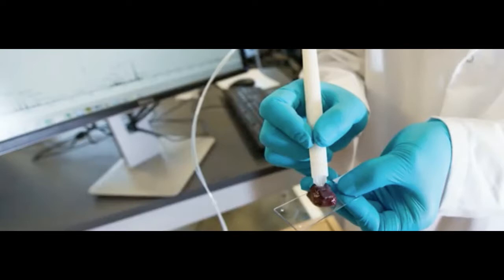Combine that with how small the pen is, and the device can be used in live patients during surgery. This means doctors can use the pen to ensure every last remnant of the offending tissue is removed before the patient is closed up, eliminating the need to send more samples away to a lab to see if they got it all, and lowering the risk of relapse.